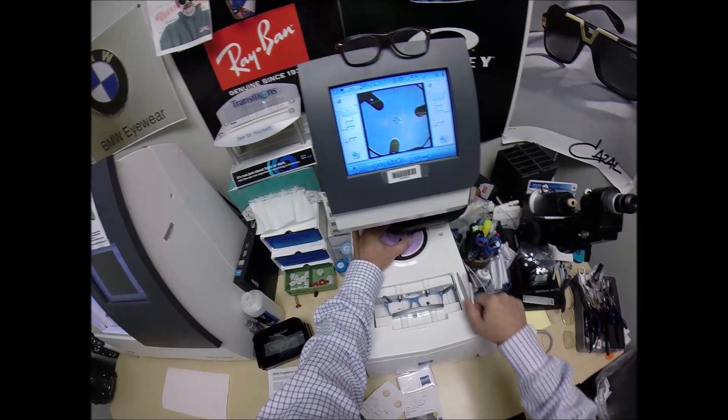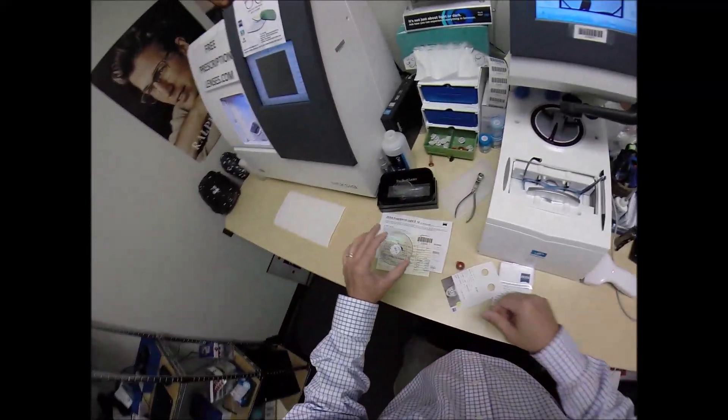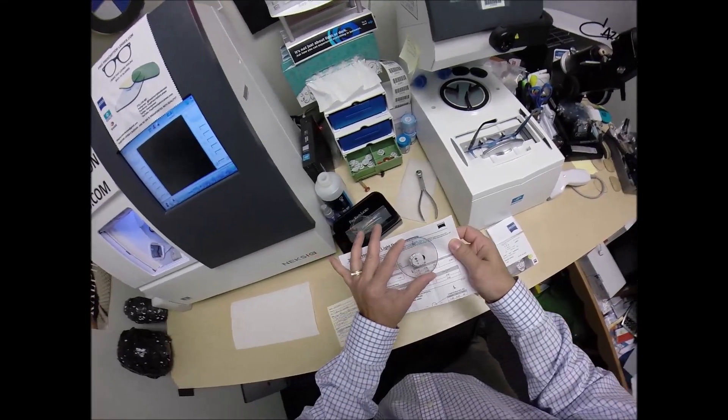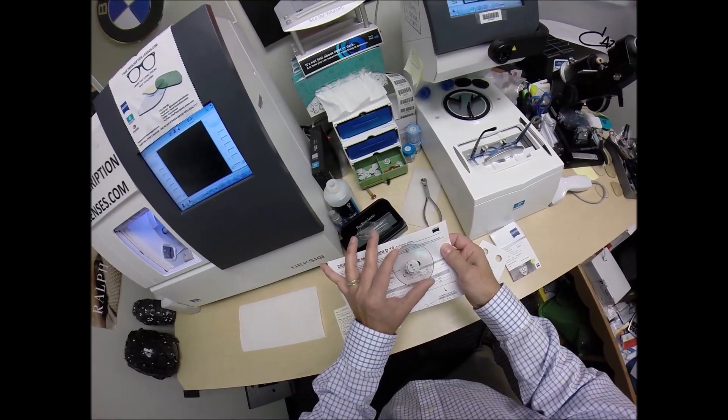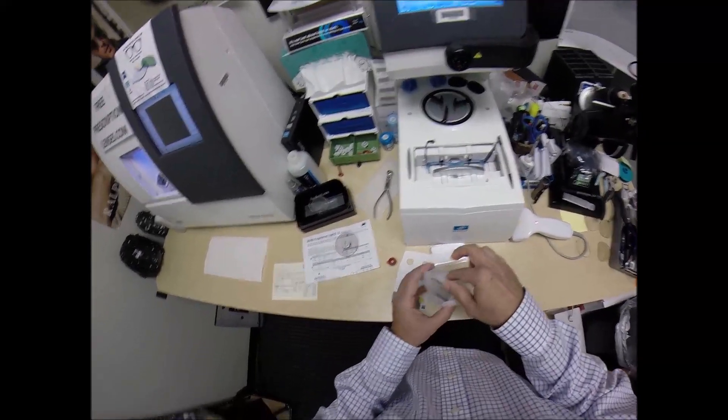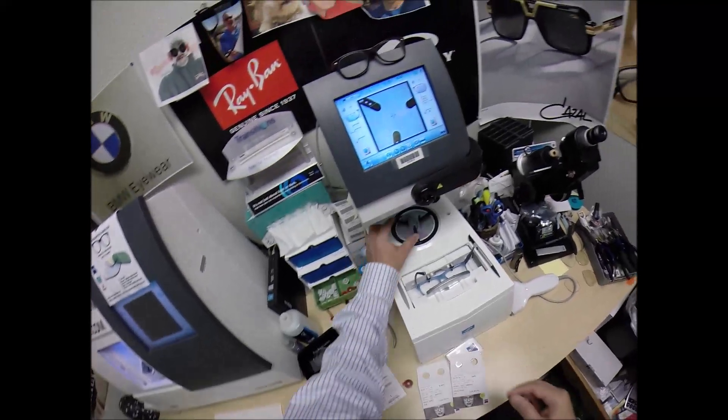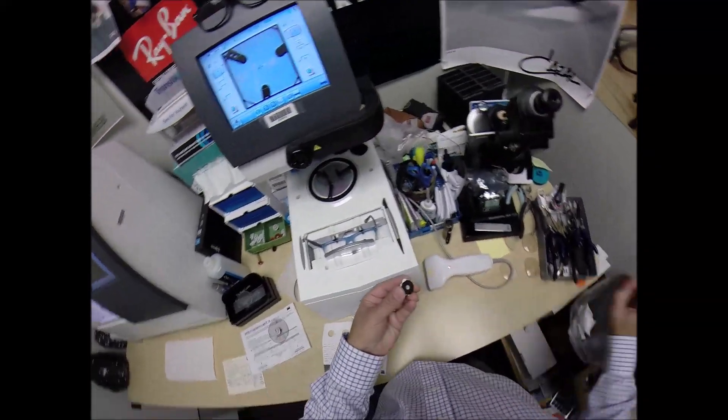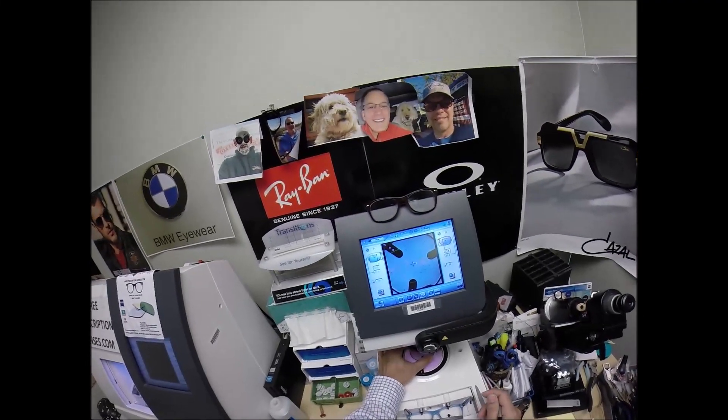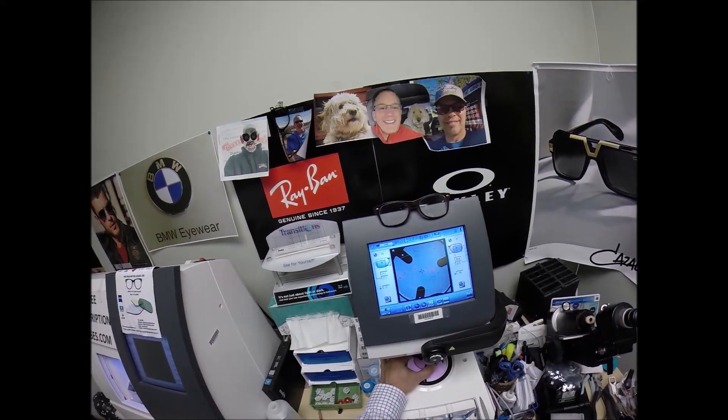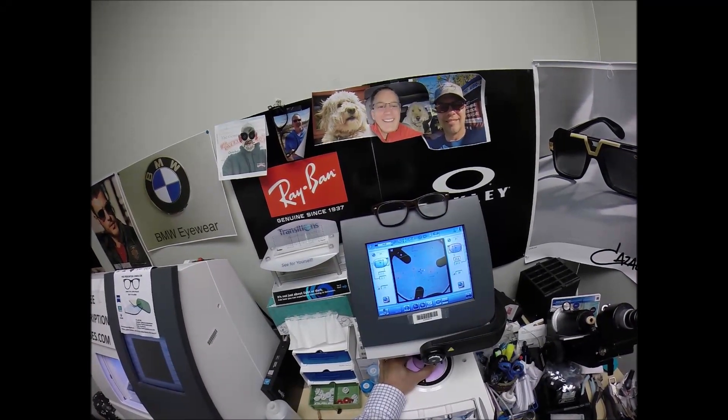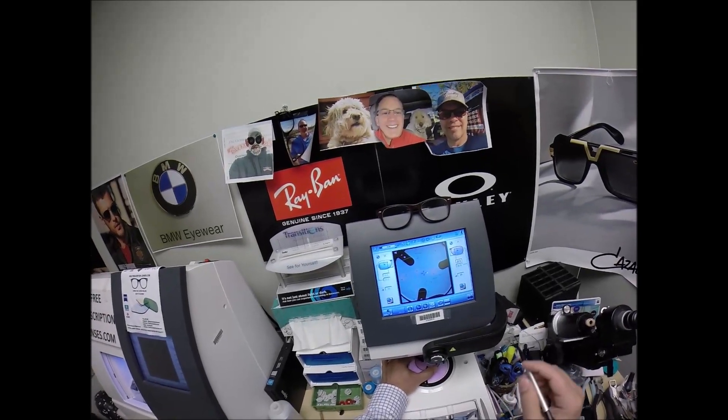Take that button. The arm is going to come down and place the block onto the right lens and you can actually see that light gray tint we had. That's a 20% gray tint. Lonnie is light sensitive so he just wanted to do that even while indoors. Now these Transitions Vantage lenses will actually turn polarized gray outside. Vantage is currently the only brand of transitions that does that. Same PD, same optical center height. Hopefully in the future we'll have it in more colors but for right now it's just in gray but that's the color he wanted so hey everybody's happy.